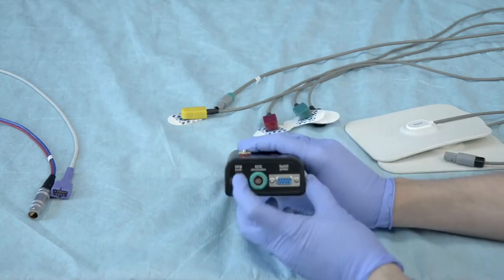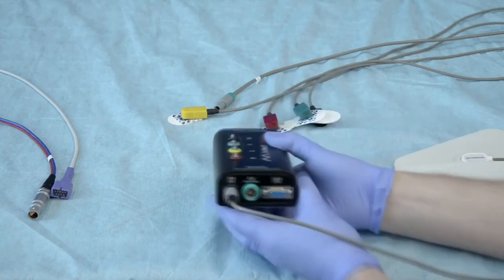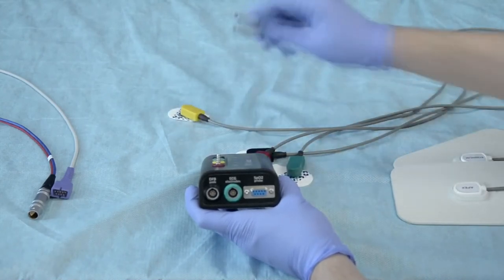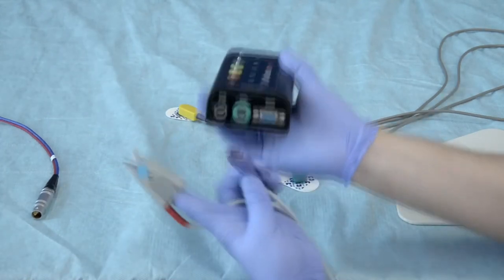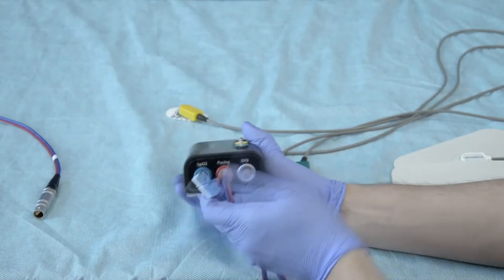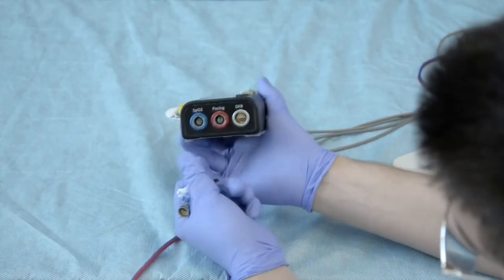Flipping it over to the patient side, we have the defibrillator pads connector. To remove it, align the rail and pull gently. The last connector is the SpO2 probe, which only goes in one way. On the defibrillator side we have the pacing port that connects to a defib, a port for connecting the defibrillator itself, and an SpO2 port for the cable that goes to the real patient monitor.